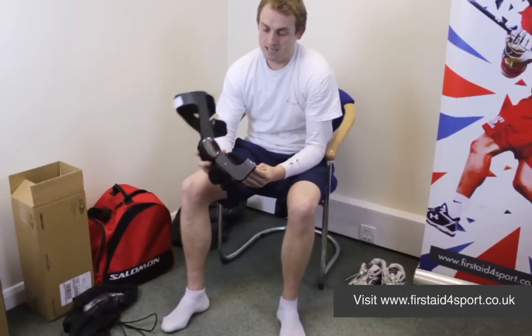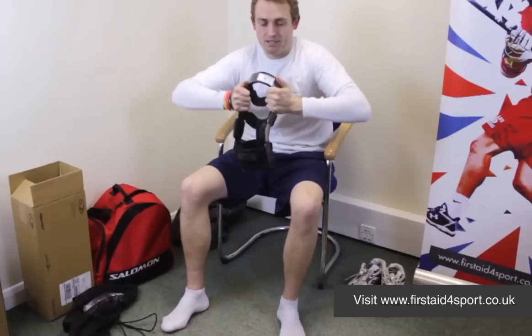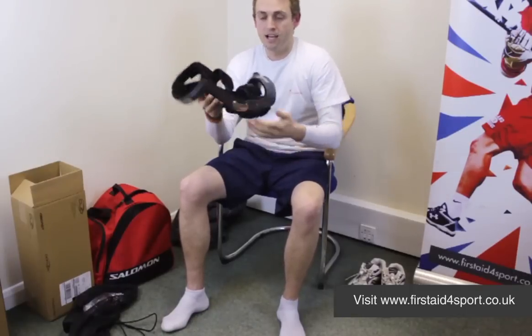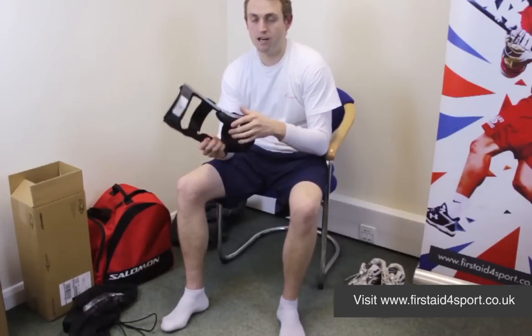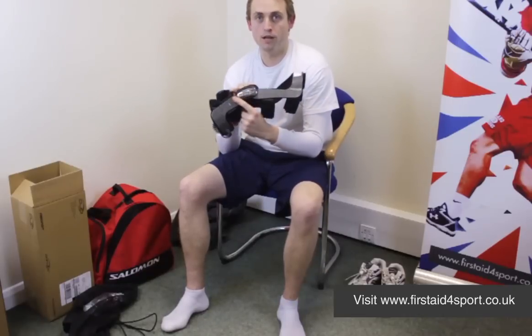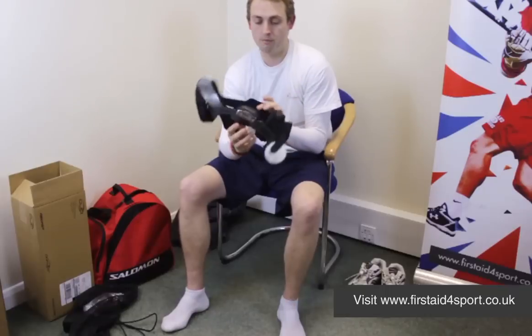It's a super strong aircraft grade aluminium frame — absolutely ridiculously strong. It's a little bit heavier than some of the other DonJoys just because the frame is so strong. It's got a little bit of bling; they've chromed up their force point hinge on both sides.